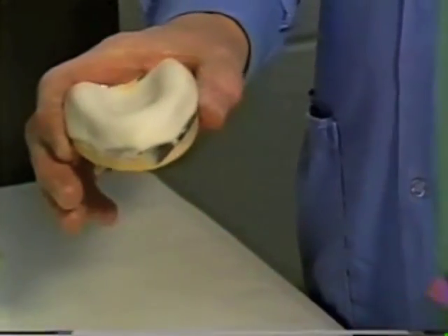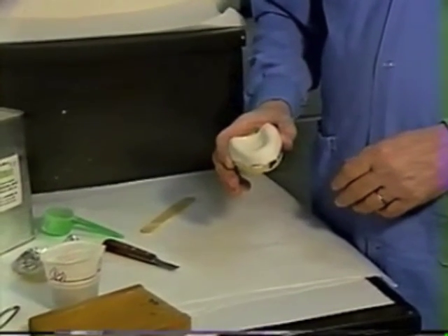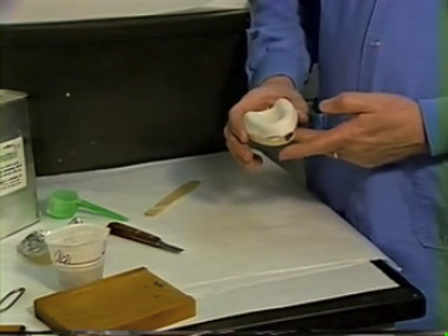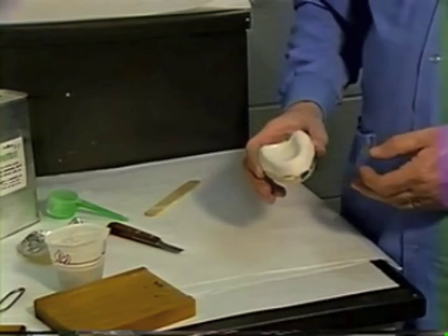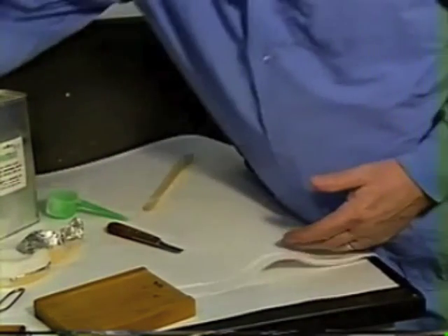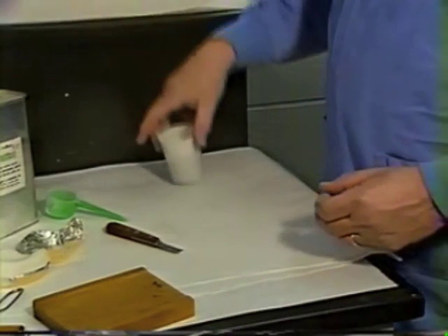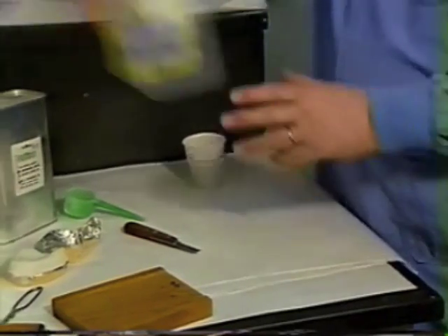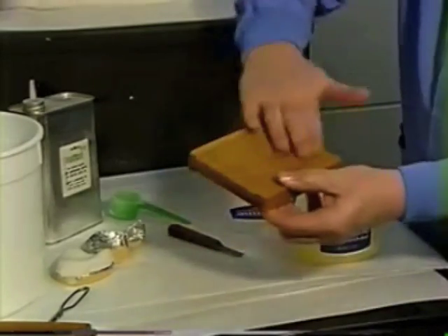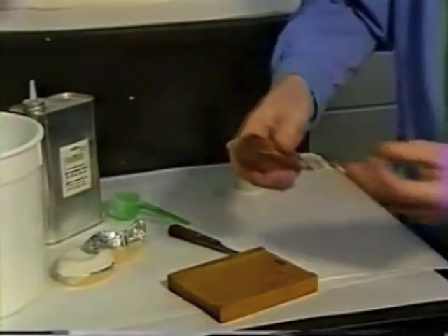Set that aside. We're going to add handles to both the upper and the lower with a third mix — one mix for the upper, one for the lower base plates, and then with the third mix I'll add handles to both upper and lower. Now we go through the same procedure for adapting the lower tray, starting by re-applying a little Vaseline to the board and roller.